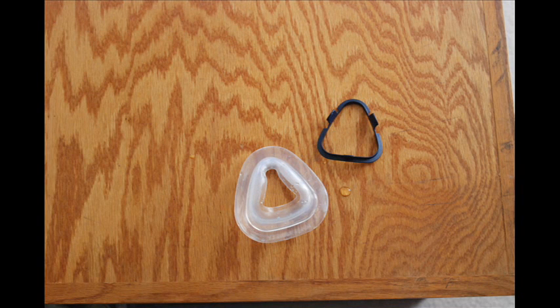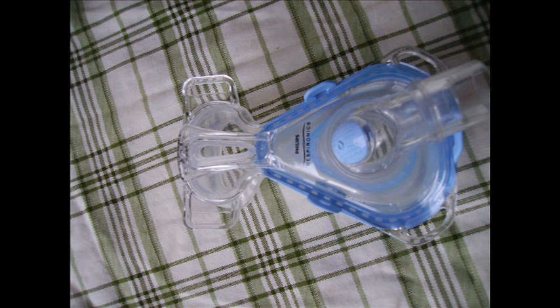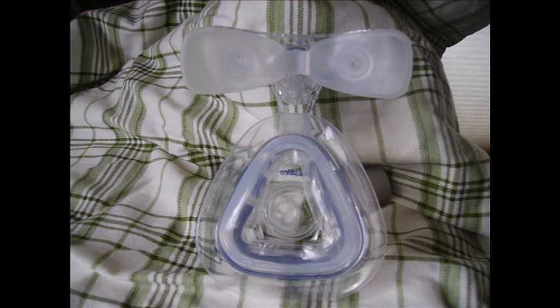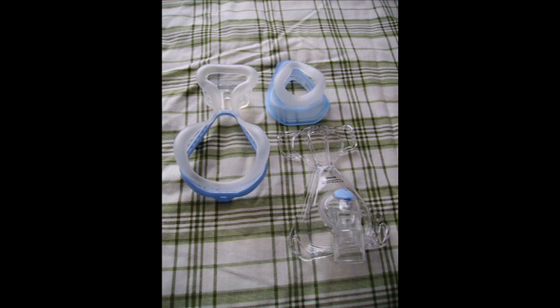Let's see ResMed's ActiveCell Technology and Respironics AutoSeal Technology at work. The one thing about both of these is that they both come out and actually engage your face. It's not like another mask where you're trying to tighten down the straps to get enough force to hold back the pressure. These actually come out and when you have the headgear set loosely, they set that distance for you. That's amazing because you don't have to fight for seals, you're going to get rid of a lot of mask lines, and your headgear is going to be a lot looser on your face.